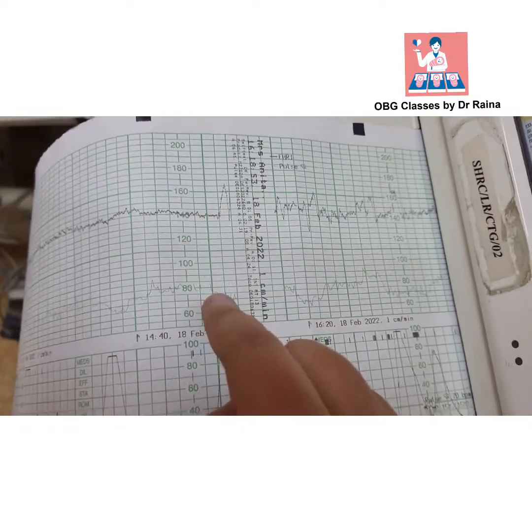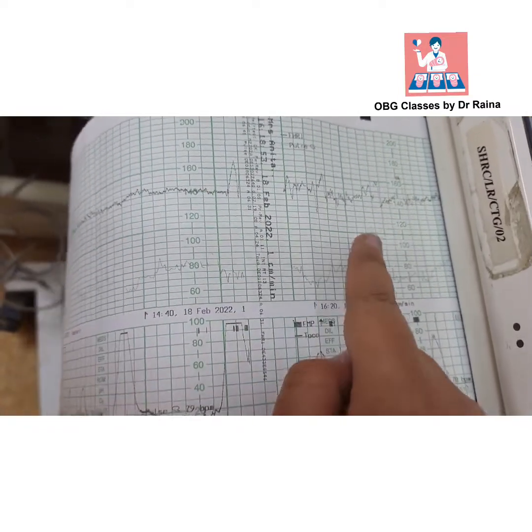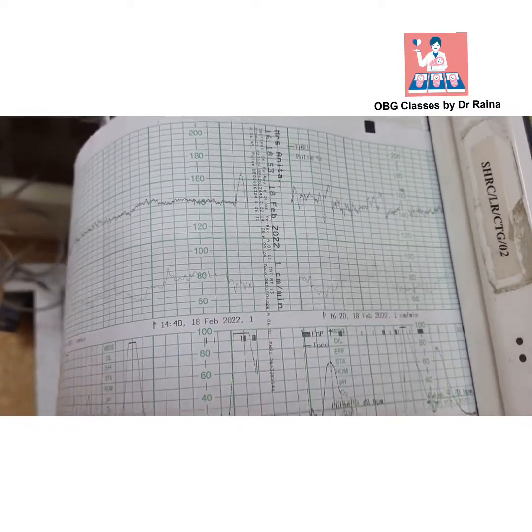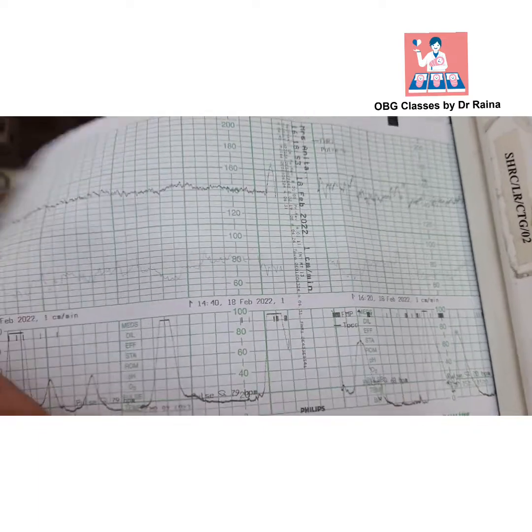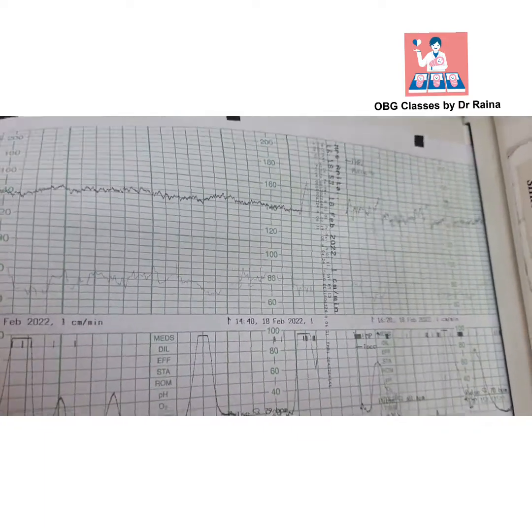Decelerations are the opposite of an acceleration and there should not be any decelerations in a normal trace. You can see here this is a normal trace.